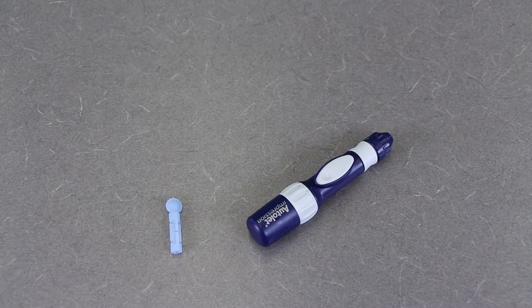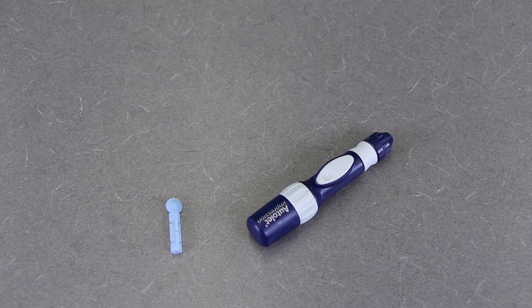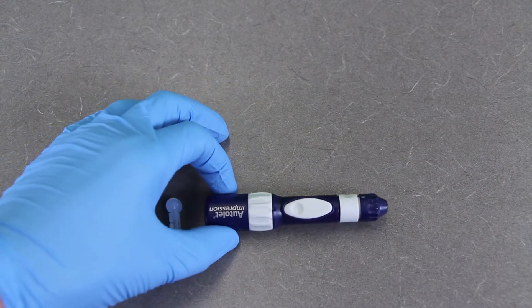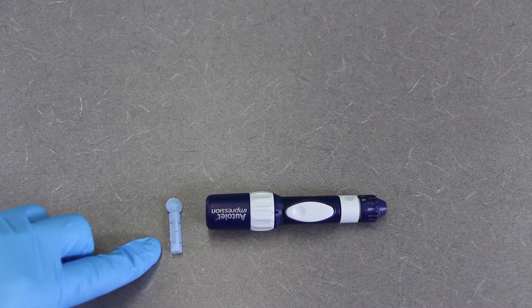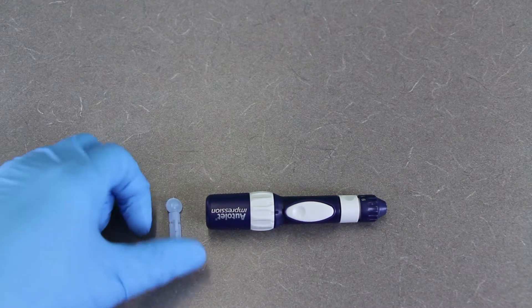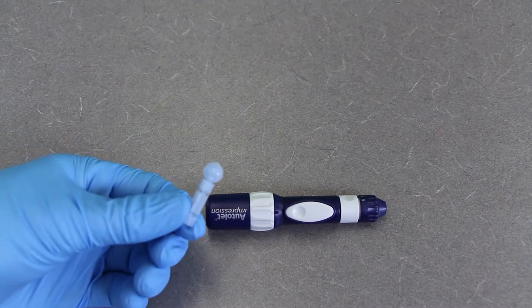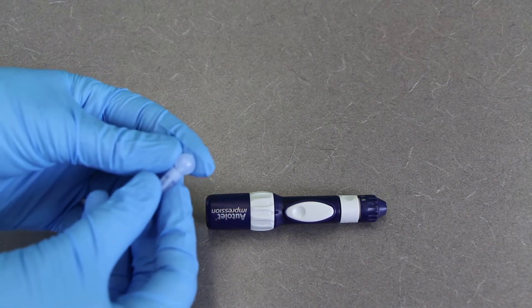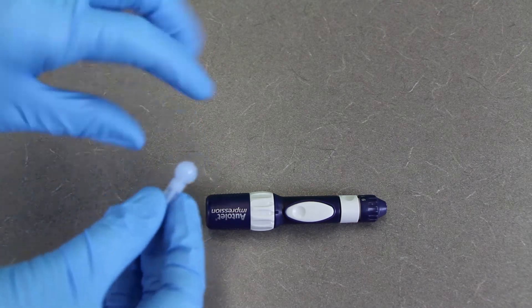which I don't have one here for you. But what's a cheaper option, a more economical option, is to use these sort of lancet guns that are reusable and to just use one-time-use lancets. So essentially this is a little needle inside of a piece of plastic. And this top rounded part is going to be twisted off.